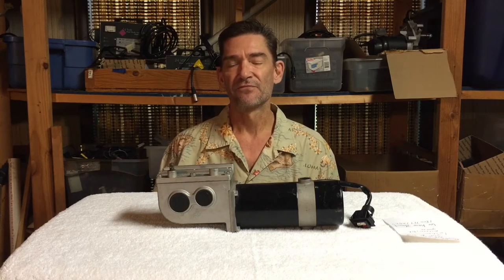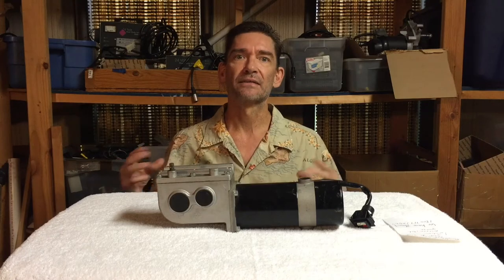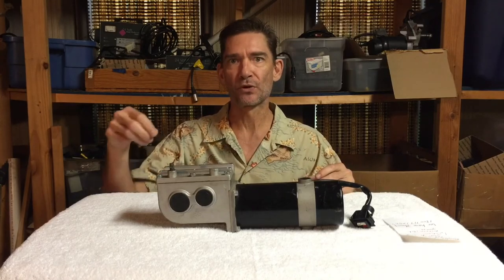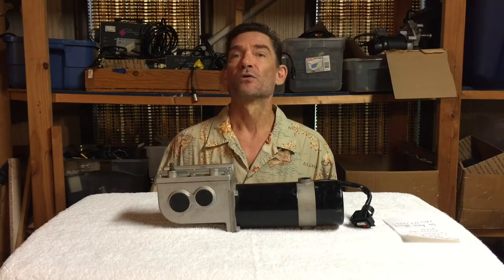If you're having those issues, check your brushes. If you're driving and you feel your chair dragging to one side a little bit and you can't straighten it out, and it just keeps dragging to the same side — that's usually a brake issue. Your brakes are designed to always be on; that's their default position. When you put power to them, as you're putting power to the motors, the brake releases. That's how the brakes work. It usually doesn't happen overnight — it's usually a gradual process.